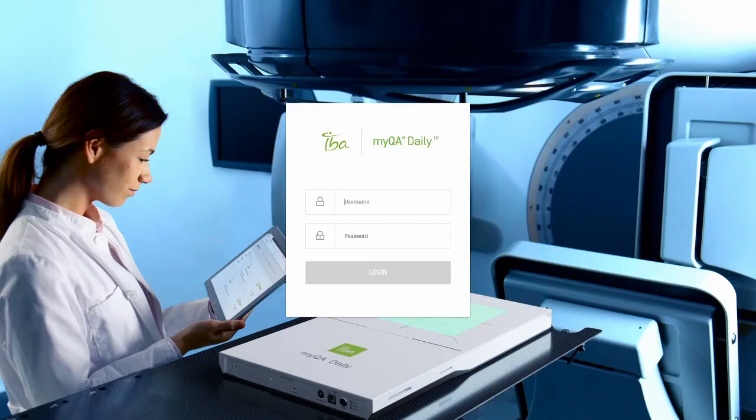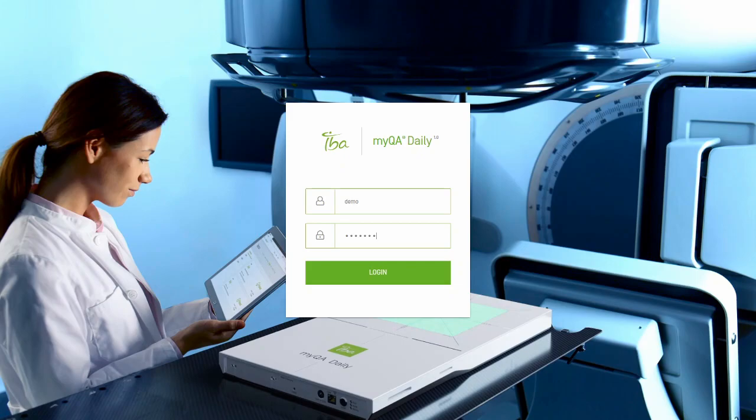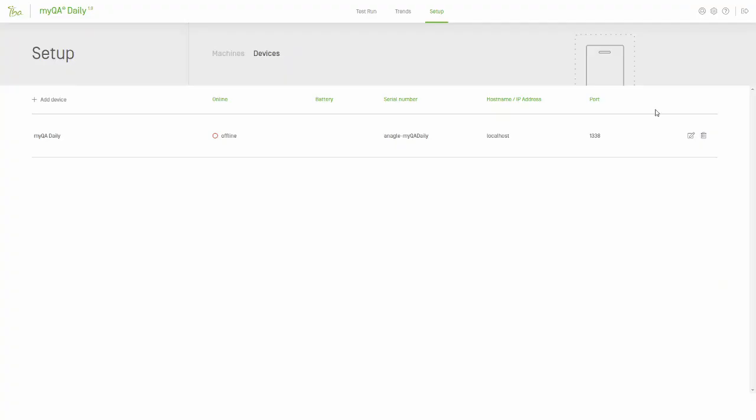In this software demo, we'll start from the step of adding a new device and demonstrate the measurement sequence for a task with one beam and a task with multiple beams.